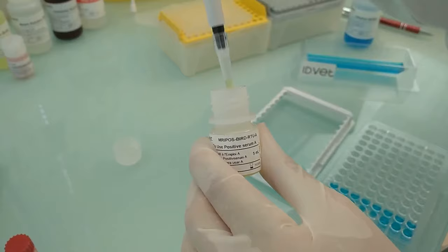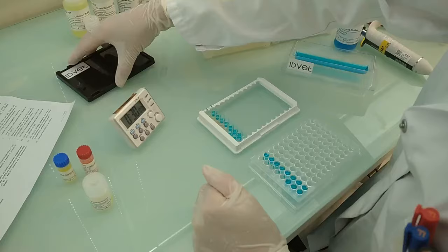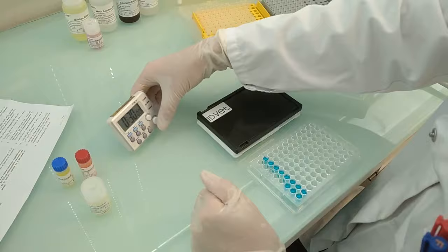And optionally, 100 microliters of the internal reference material to well E1. Then cover the plate and incubate 30 minutes at 21 degrees.